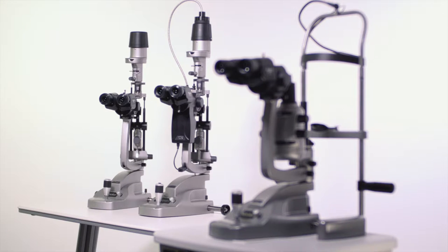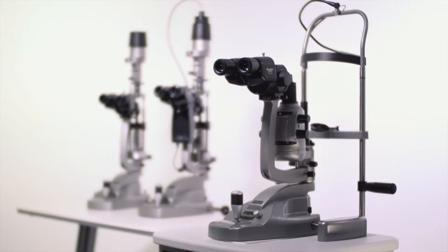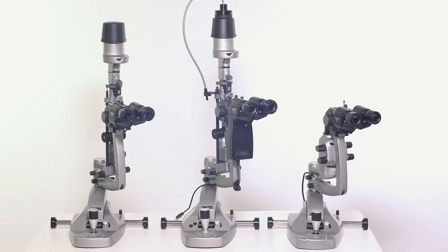The Keeler slit lamp family offers Keeler quality optics and illumination across our line of Z-Style, K-Style, digital and portable slit lamps.